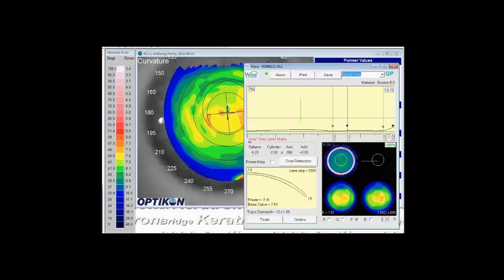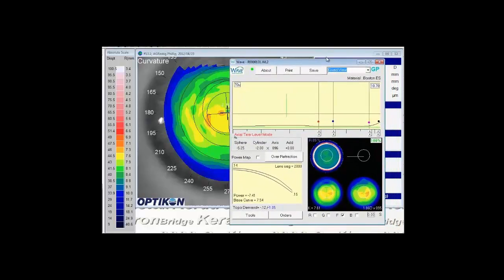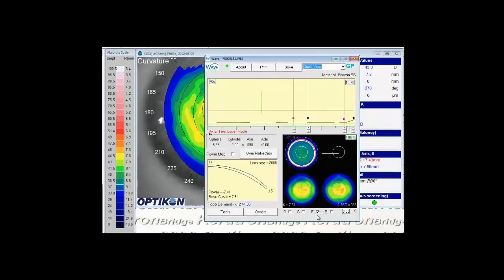Now that we have covered the basics of designing a wave contact lens, we're going to go over some of the troubleshooting techniques and some of the finer points of wave. So here I have a basic wave design. This one is a free form lens.